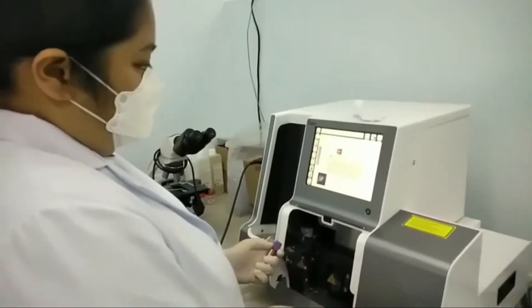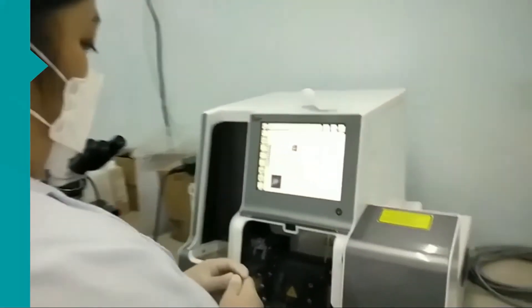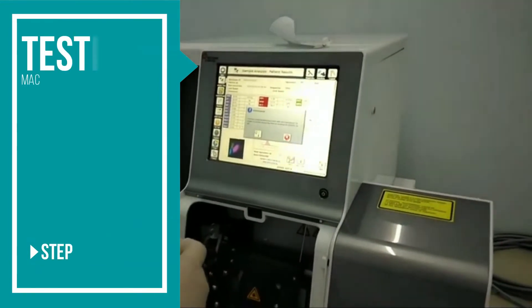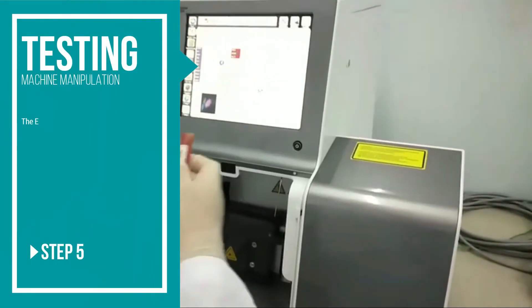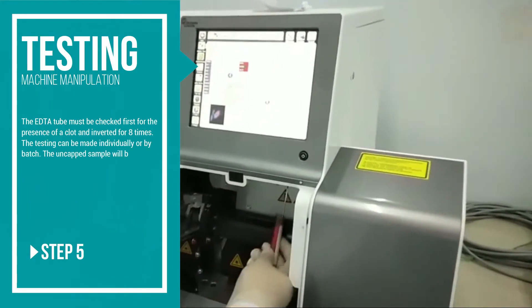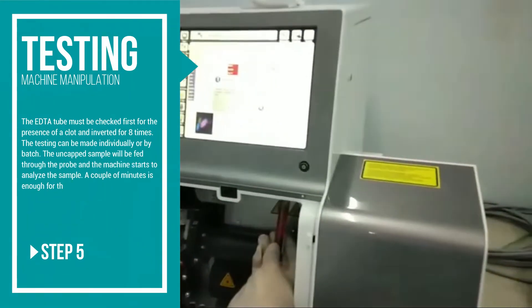According to the laboratory protocols, before starting the shift, the medic on duty must perform a daily check as their quality control. The EDTA tube must be checked first for the presence of a clot and inverted eight times.